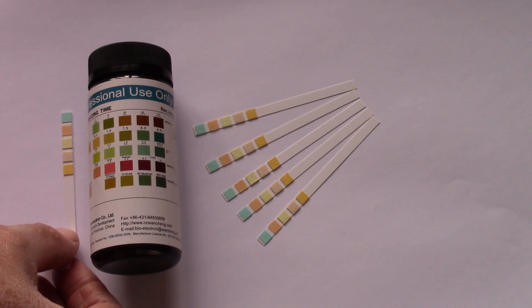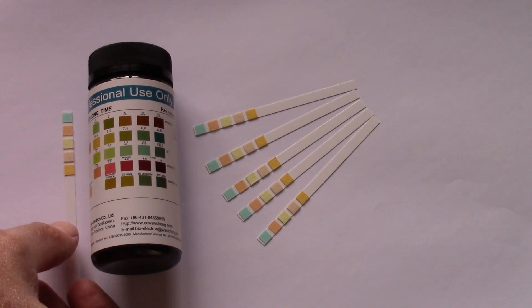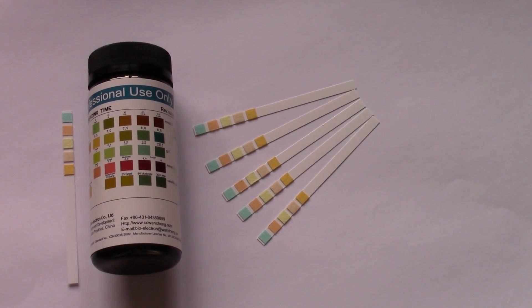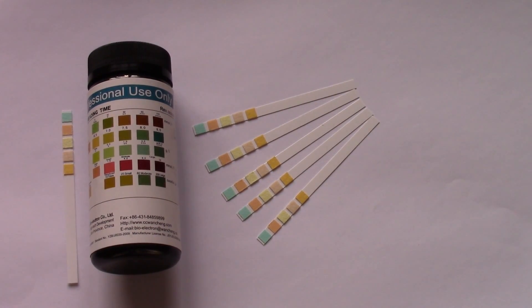So there you have it, that's the Wang Cheng URS 5K five parameter urine reagent test strips and guidance on how and what you're looking for when you're buying this product to do testing for yourself.